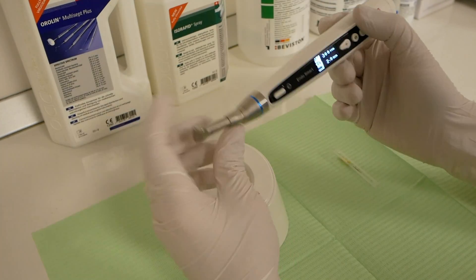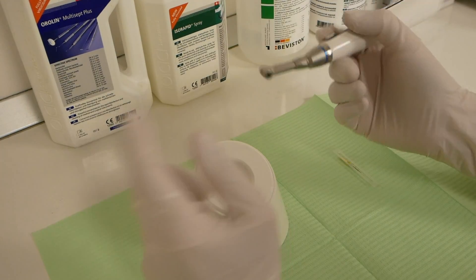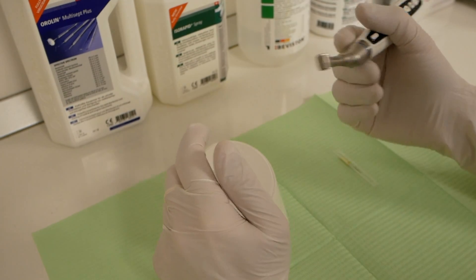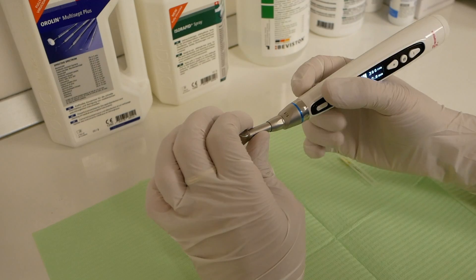As you can see it's wireless. It functions without any wires. It's very light, so your hand will not get tired after several hours of using it.